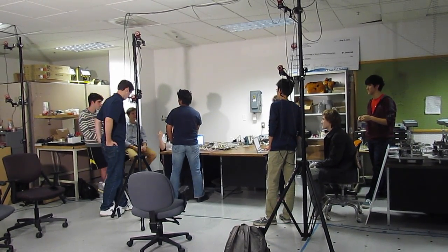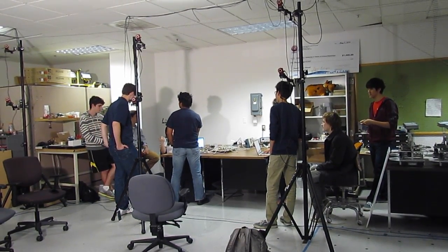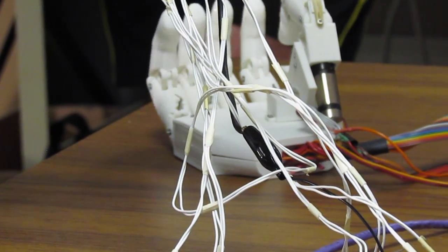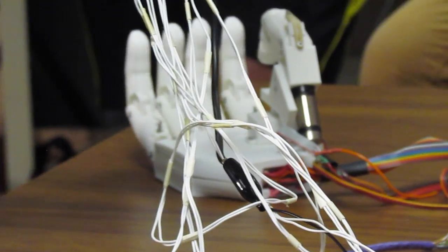Our next goal is to go back to Ecuador soon with a fully functional prototype and actually incorporate the skin stretch device and electro-tactile stimulation to be one of the first prosthetic hands that incorporate sensory feedback.